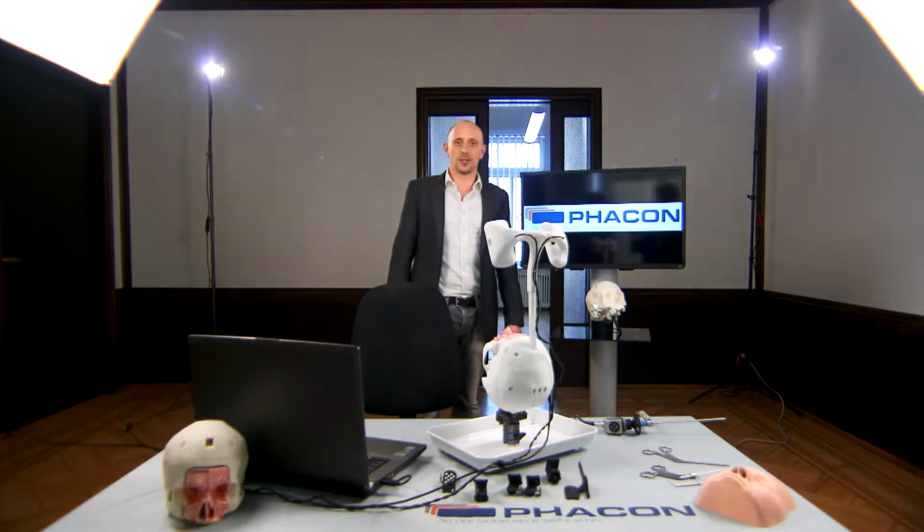Hello, my name is Robert Hase, and in the next few minutes I will show you the Phacon concept, and this means I will explain to you the assembly instructions and the function of the systems as well.